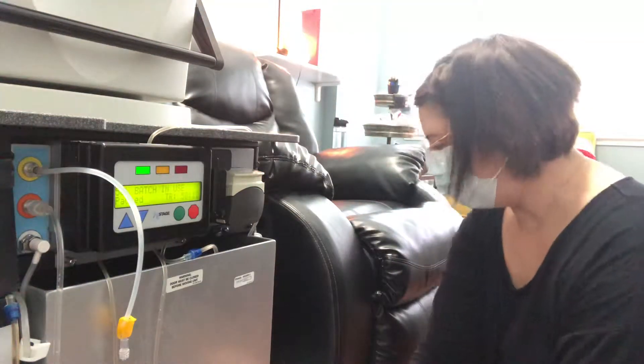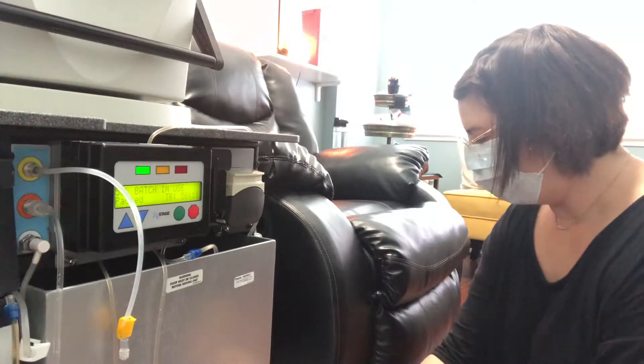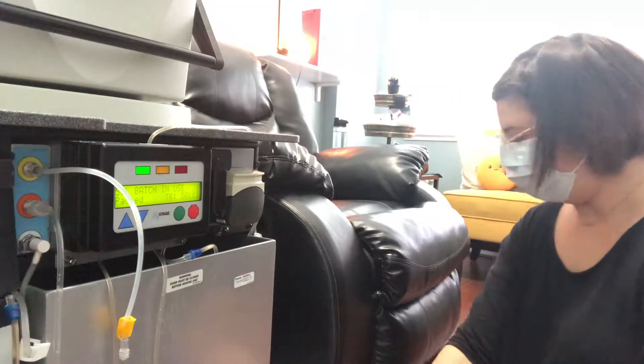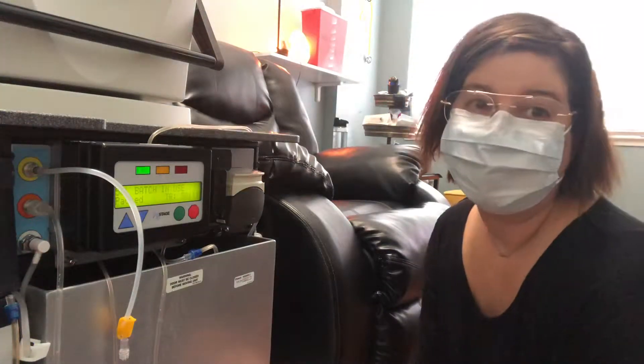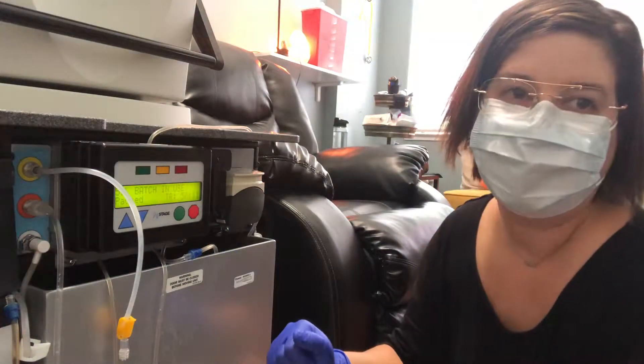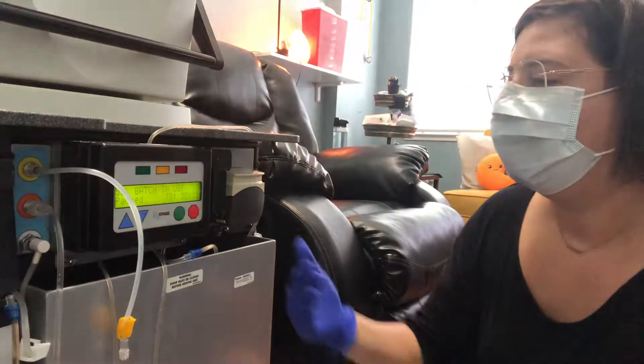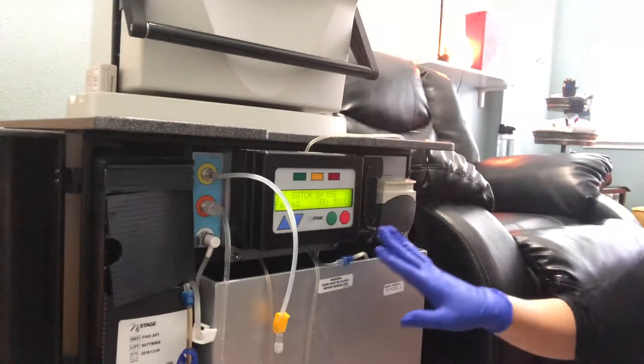Okay, so we are going to collect samples Monday through Friday. Transport the samples on ice. So today is Monday and I just finished doing my last second batch on my pure flow. So it's now on pause, as you can see.